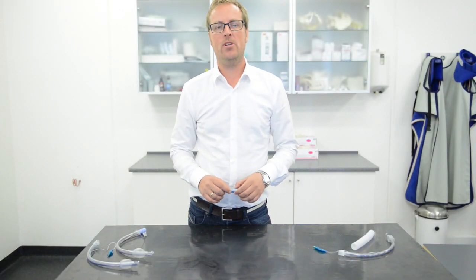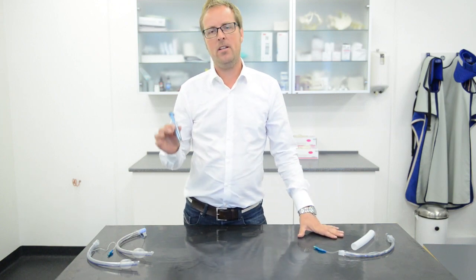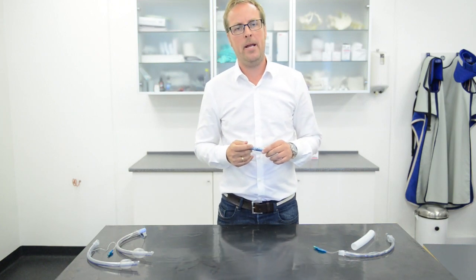Hi, I'm Lars from Kruse. Please let me take one minute of your time to tell you about this nice little unique device which will help you practice better medicine.